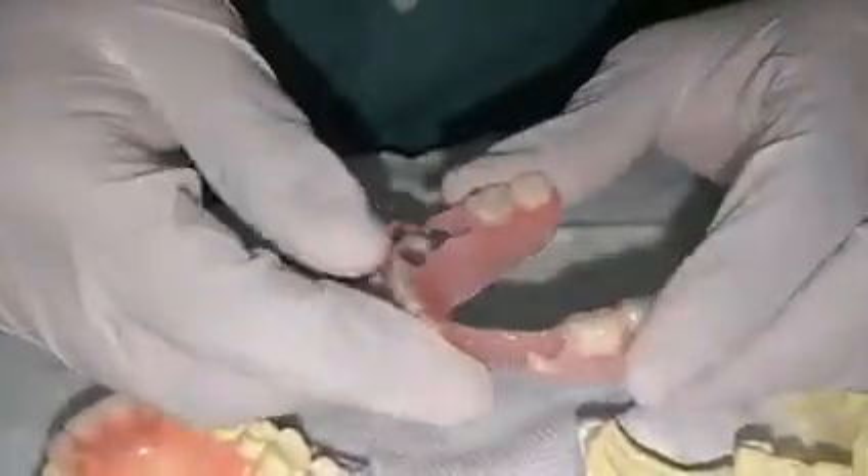For the lower, they were missing both anterior and posterior teeth. The posterior area had root stems and no remaining teeth in the back on this side. This is the flexible denture I have made for them.